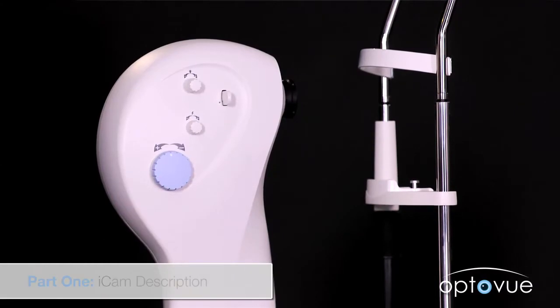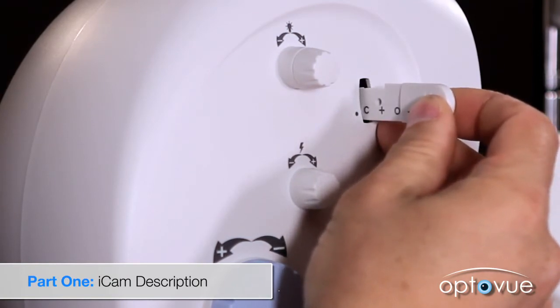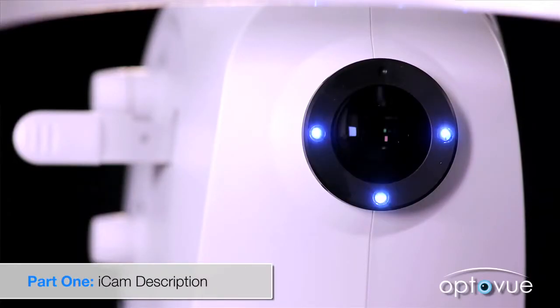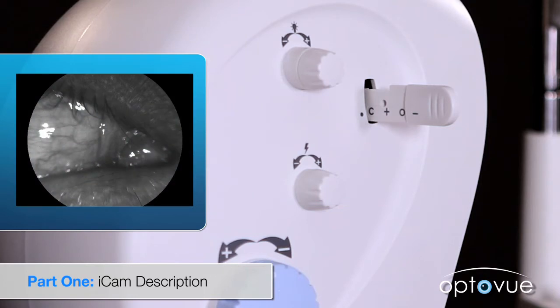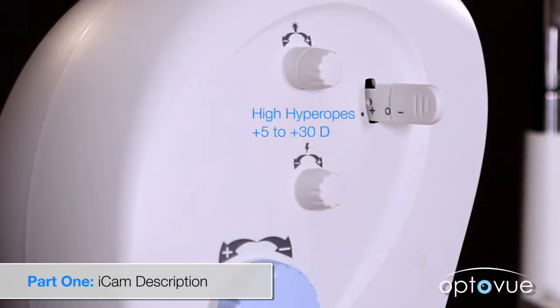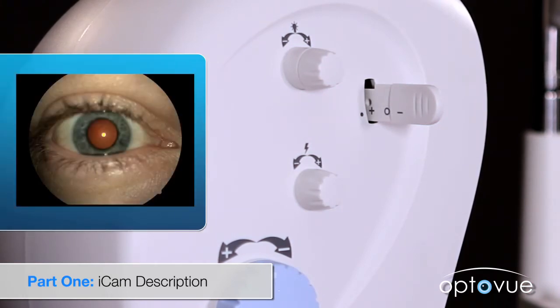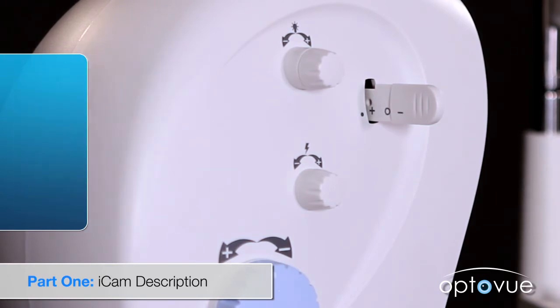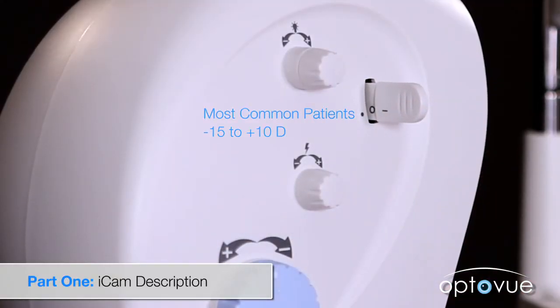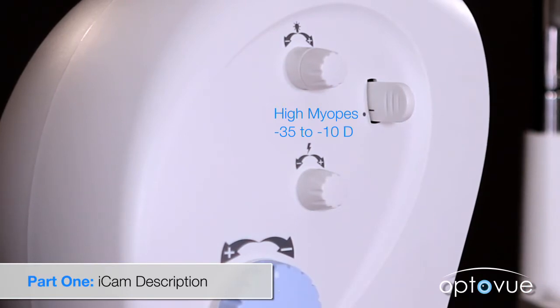The diopter compensation selector is used to select the type of photography. Starting with the selector pulled all the way out is C — for cornea or external imaging, meant to be used with the three external LED lights, allowing close-up imaging of the external features of the eye. Next is plus, for retinal imaging of high hyperopes, plus 5 to plus 30 diopters; it can also be used for external imaging using the internal flash, resulting in an external image with red reflection off the retina showing in the pupil. The zero is for retinal capture of the most common range of patients, negative 15 to plus 10 diopters. Lastly, minus is for retinal capture of high myopes, negative 35 to negative 10 diopter range.